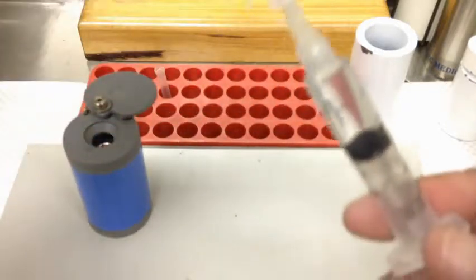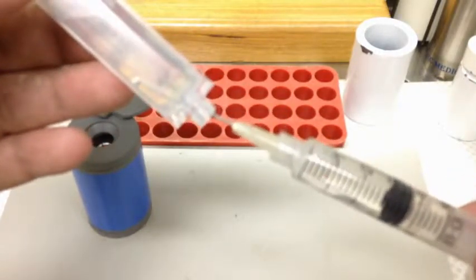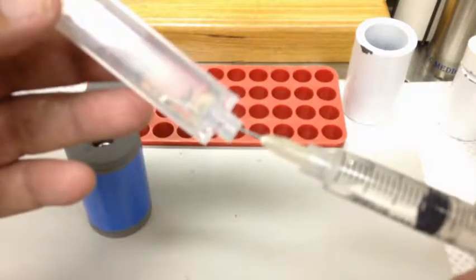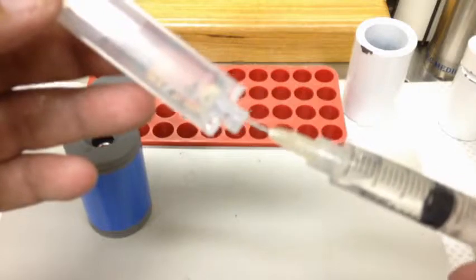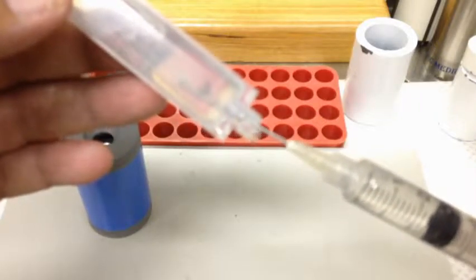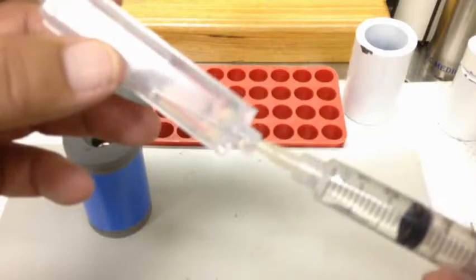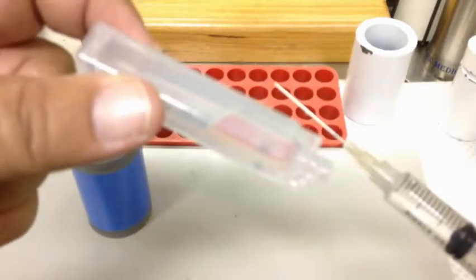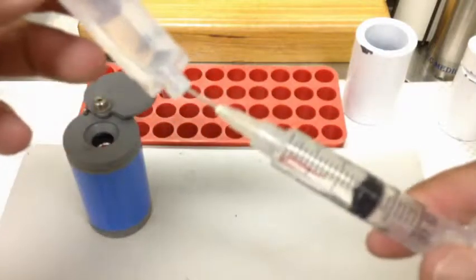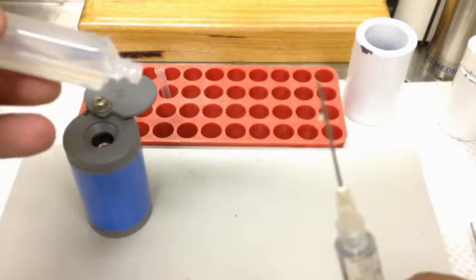One of the common errors I see is that when someone ends up with a bit of air in there, they go — I don't know where 5 mils is going to be — so what they do is they squirt it back in, because they saw that happen with someone doing it in the elution vial. But in this particular case, because this is not sealed here and you've got air coming in, effectively you end up getting drops. So you're going to end up with contamination — you're going to potentially introduce your technetium into this and then it's going to flow out. You'll end up with a spill, and this is going to be radioactive, so instead of going into general waste it's going to go into radioactive waste. The other thing we don't want to be doing is trying to clear your syringe like you see in the movies — we don't want to be doing that with radiation.